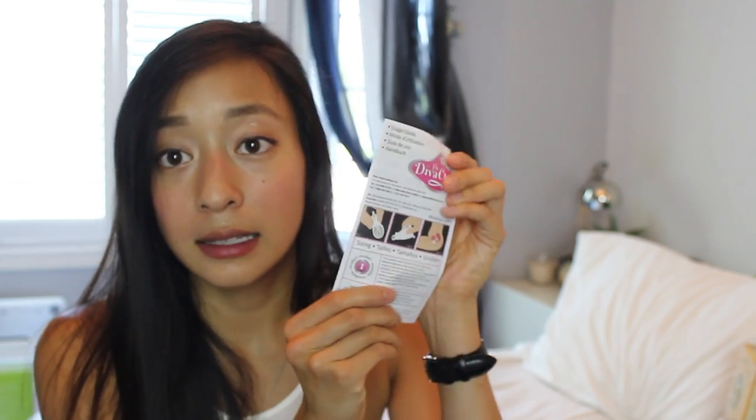I bought this myself. I am still very hesitant looking at this thing. Shall I do an unboxing? I haven't opened it yet, so it's still sealed at the top. I'm too lazy to go downstairs and grab scissors. Oh, I got it going. So it comes with this guide right here that tells you how to use it, how to fold it, and how to maintain it. And it also comes with a bag, which is what you store it in — a super cute little pouch.